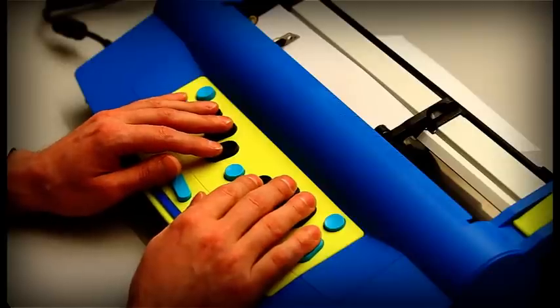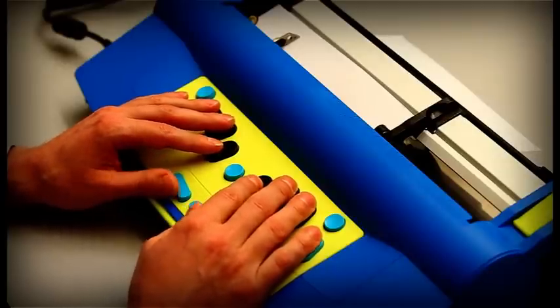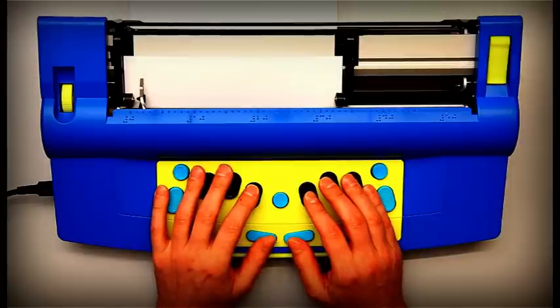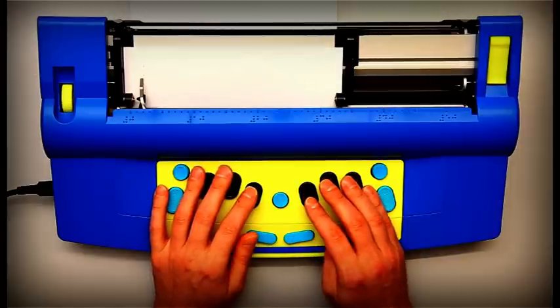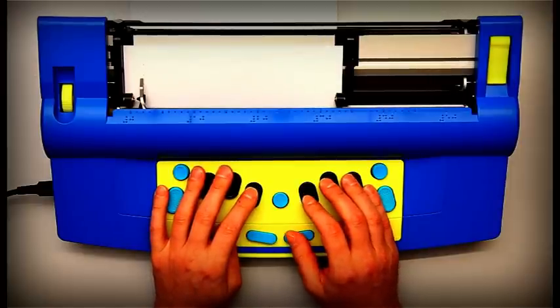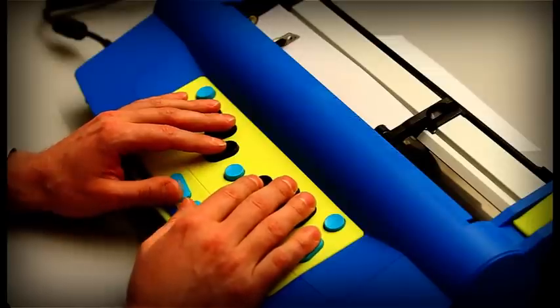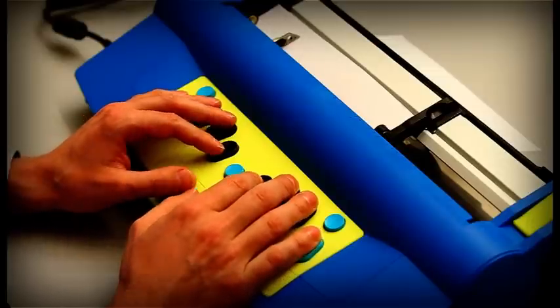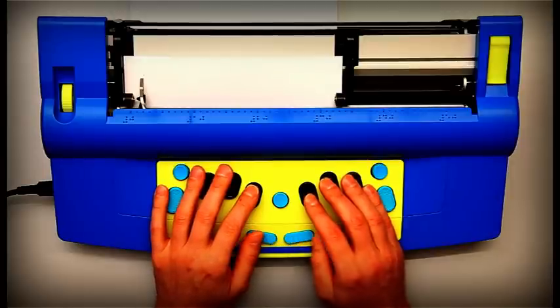At the bottom in the center of the keyboard, right under your thumbs, you have the new line key on the left and space on the right. These last two keys are nearly rectangular in shape, with rounded right and left ends and flat tops.